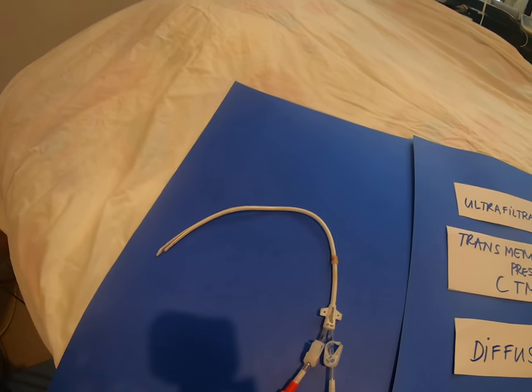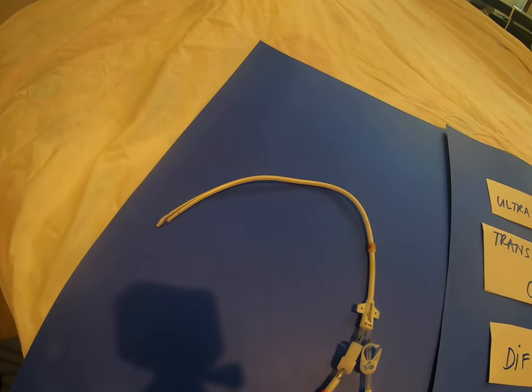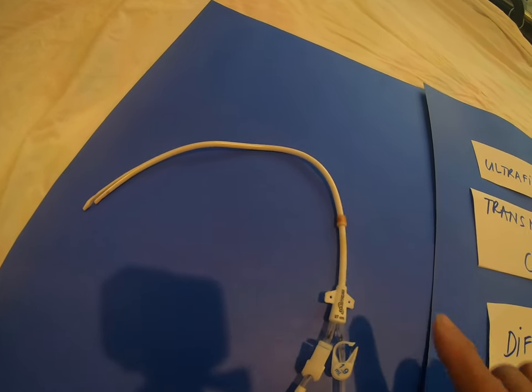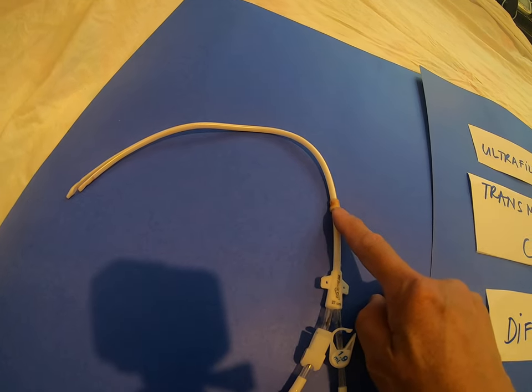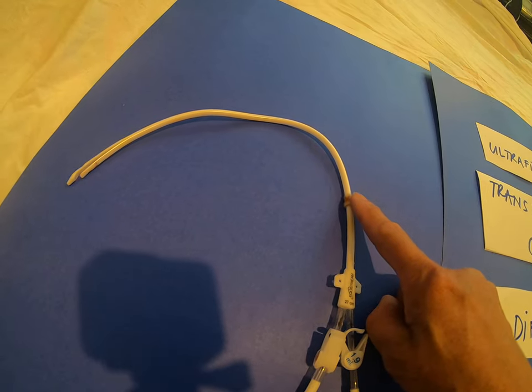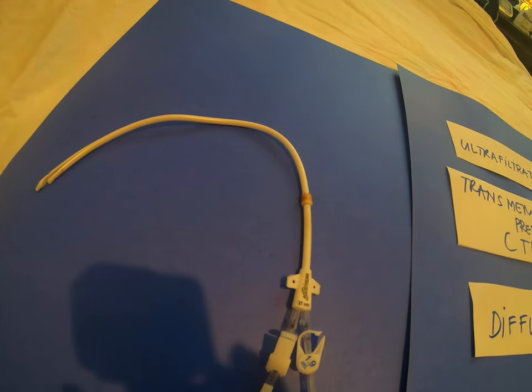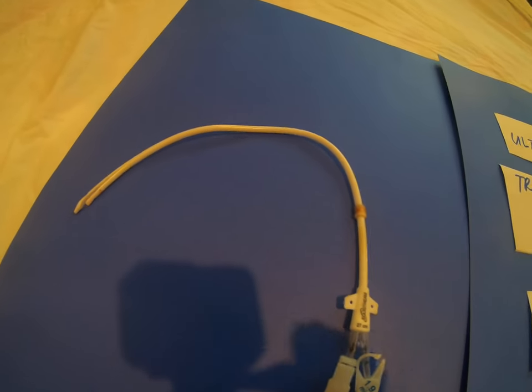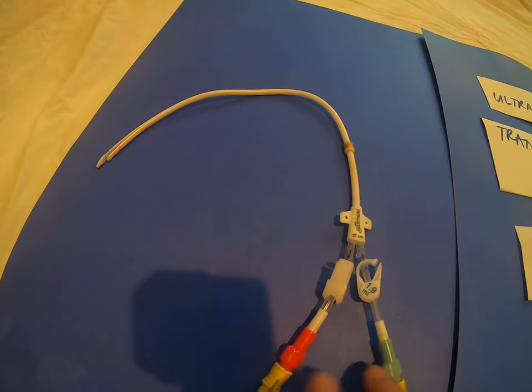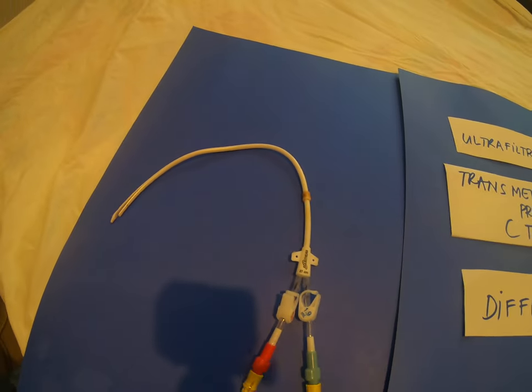On my left we have an example of a permacath catheter — this is a real one. They choose the best vein for placement. At the end of the catheter you can see a little bump; this sits inside the skin and acts as a stopper so the catheter cannot come out. The insertion point is just underneath the skin, and the catheter has a dual lumen — an arterial limb and a venous limb.